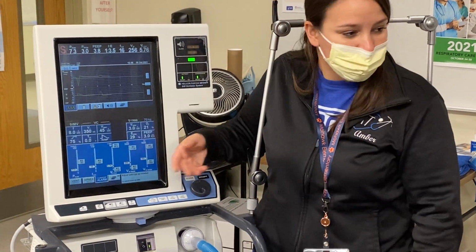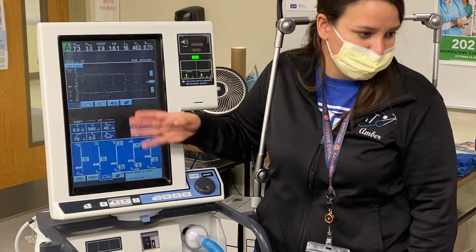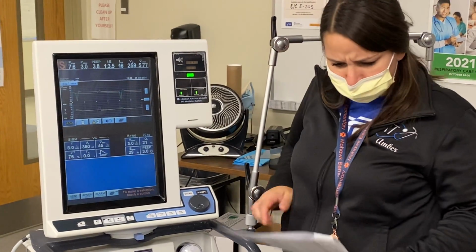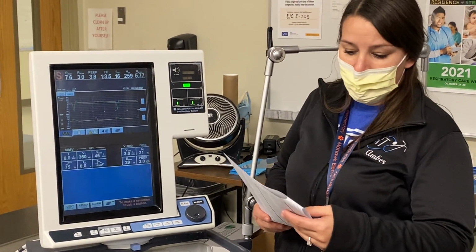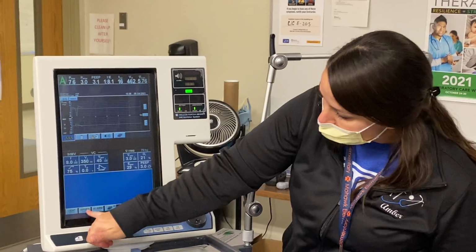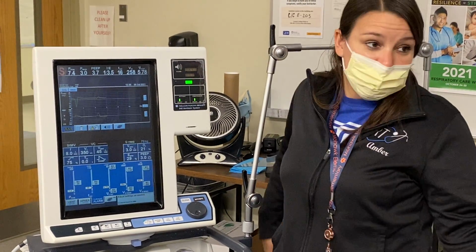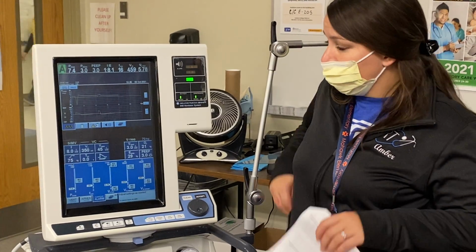Alarms, you guys should know by now the percentages for where you have to set your alarms, okay? So you put all that in, you call us over, and we're going to make sure your apnea is done correctly. We're going to make sure your alarms are put in correctly. We're going to ask you guys, do you have any leaks?